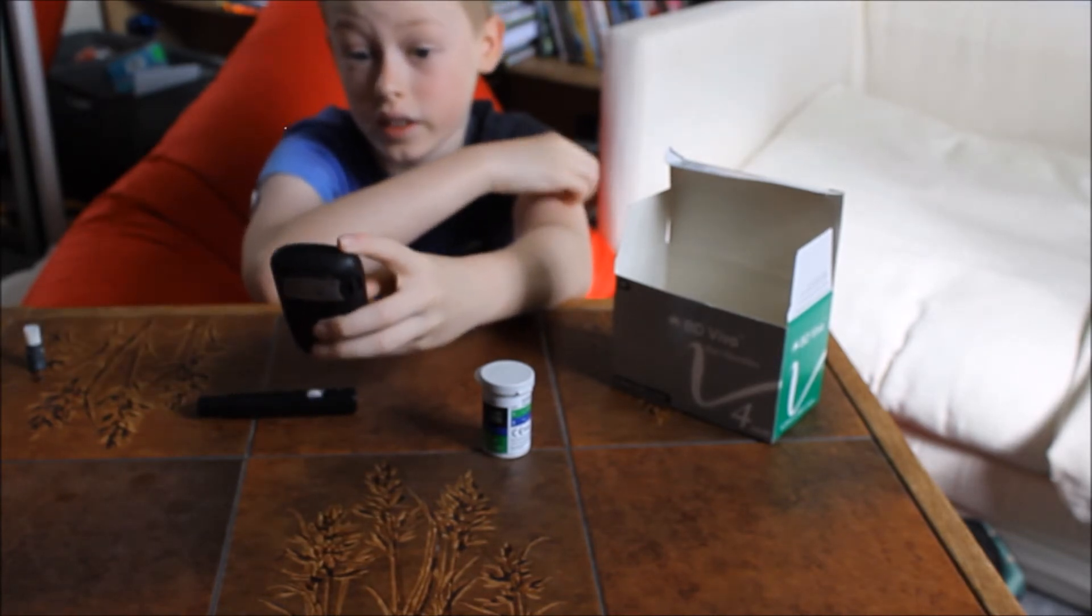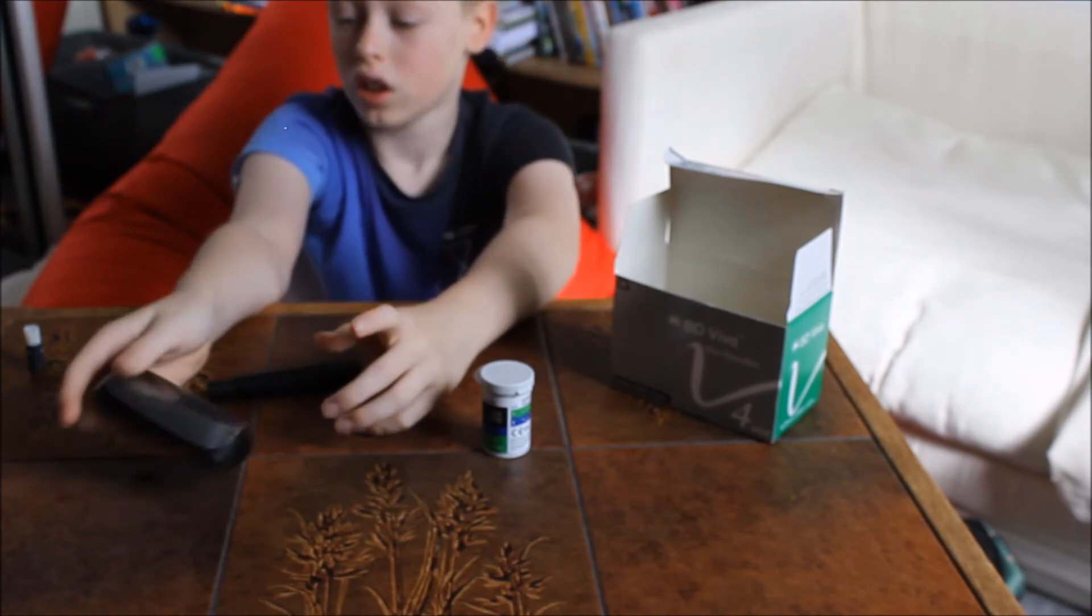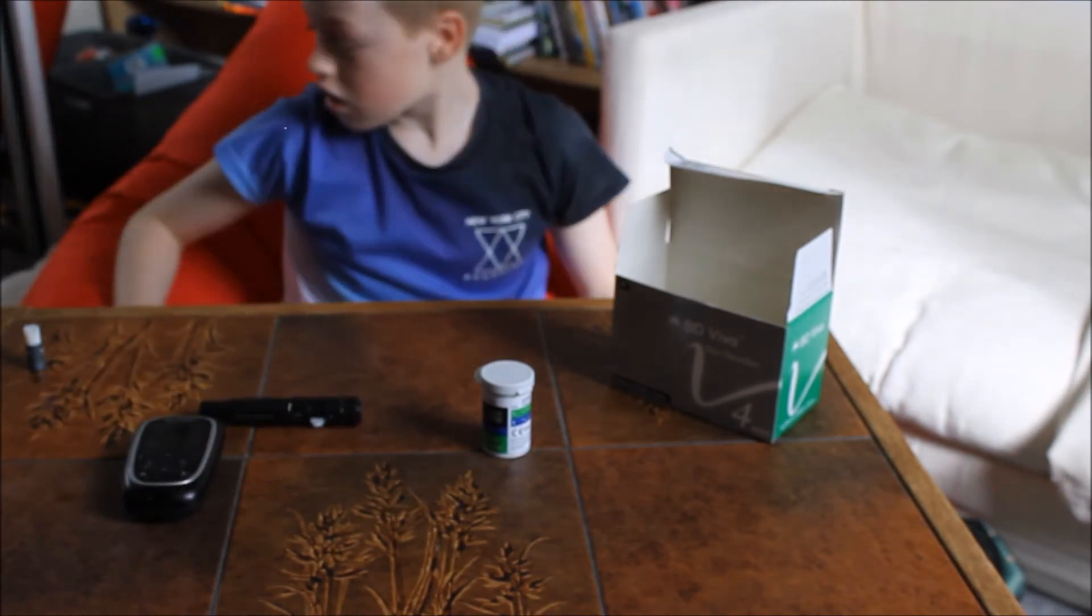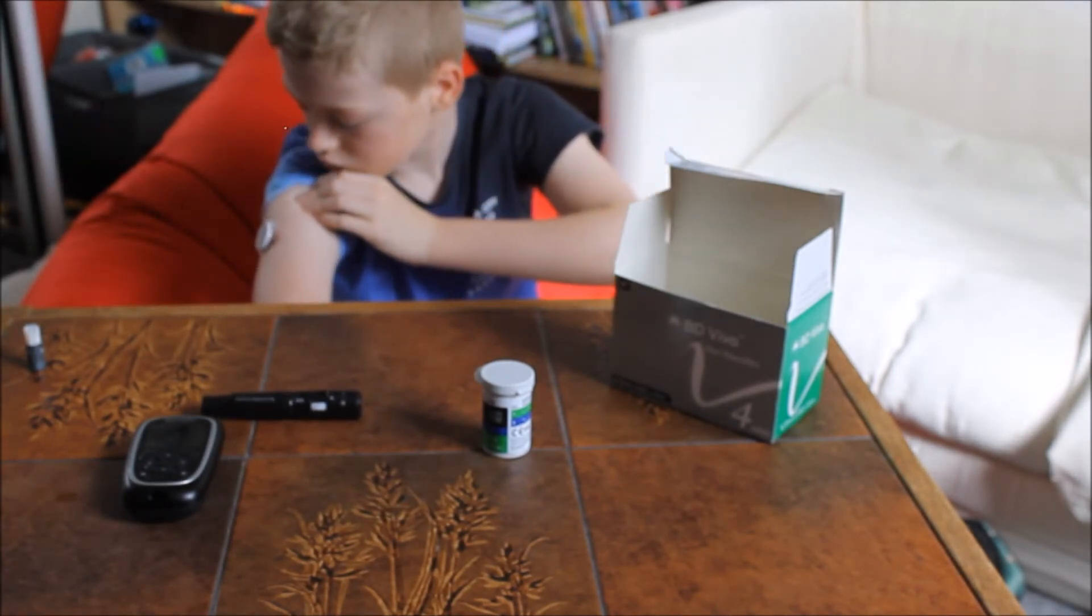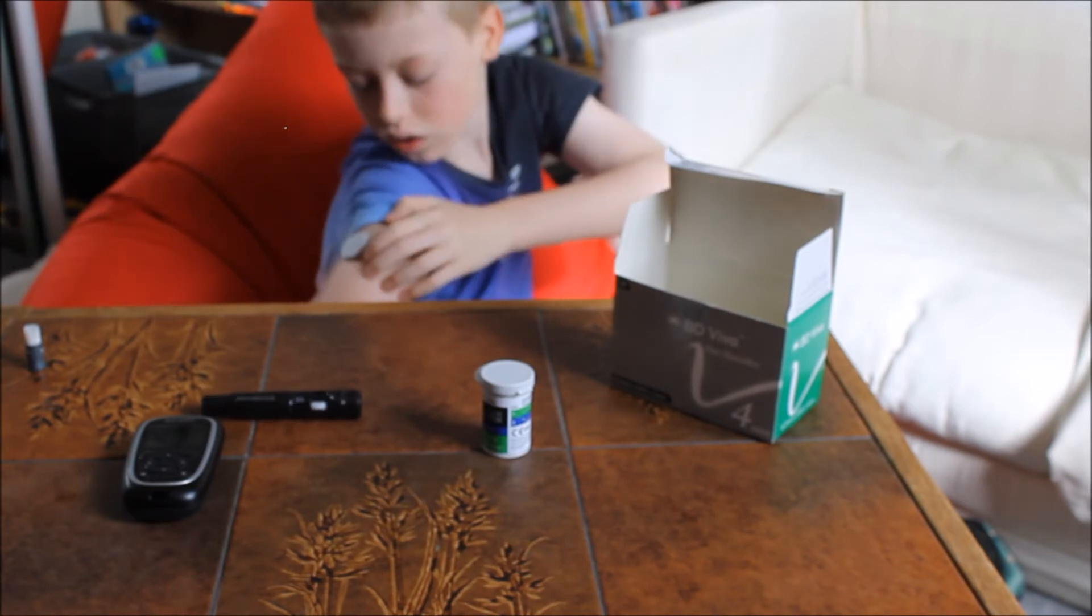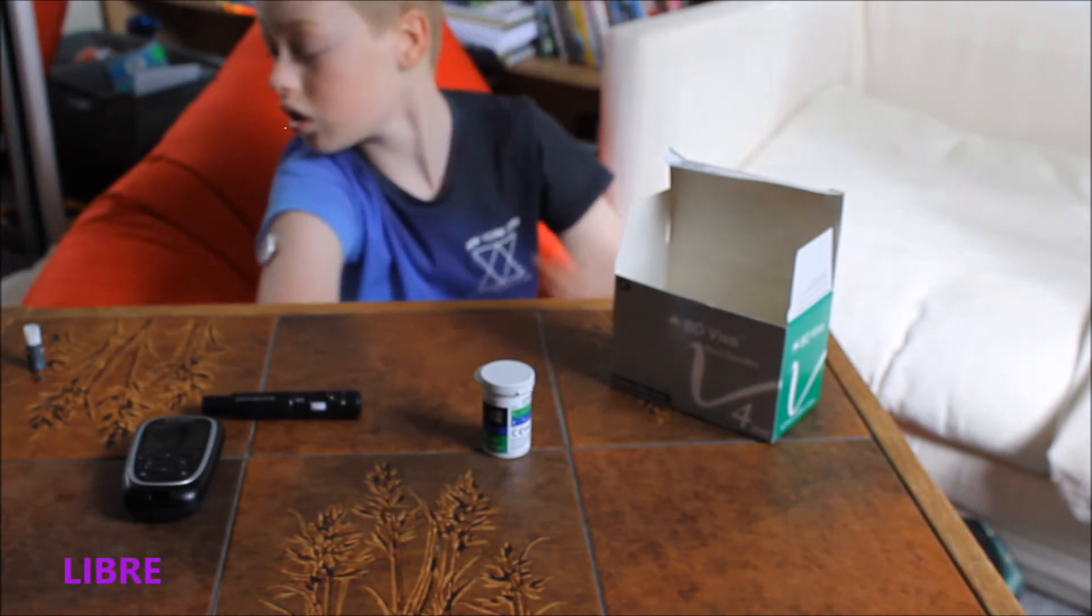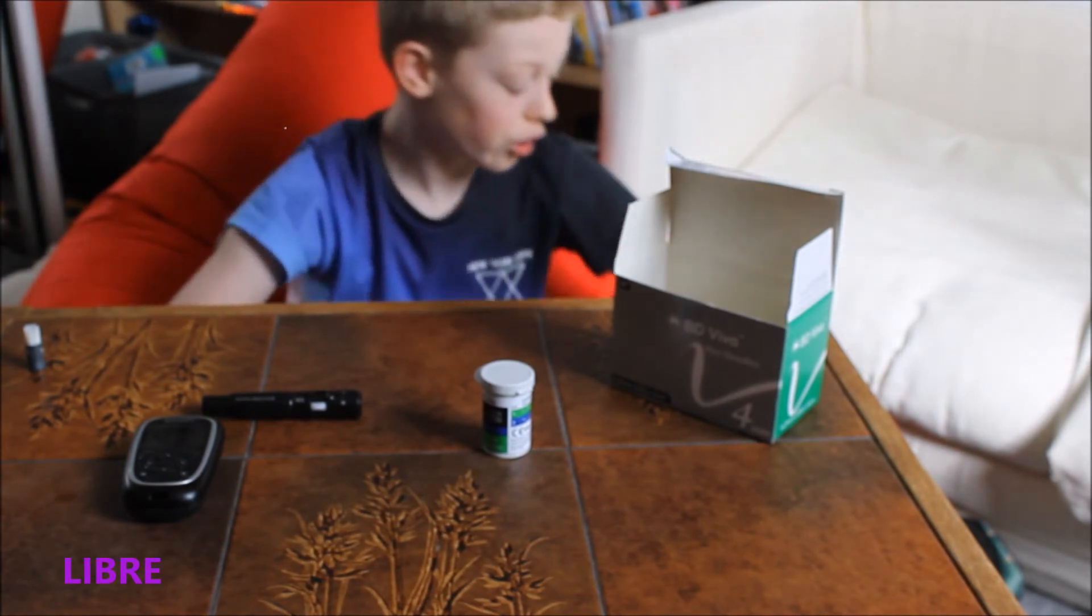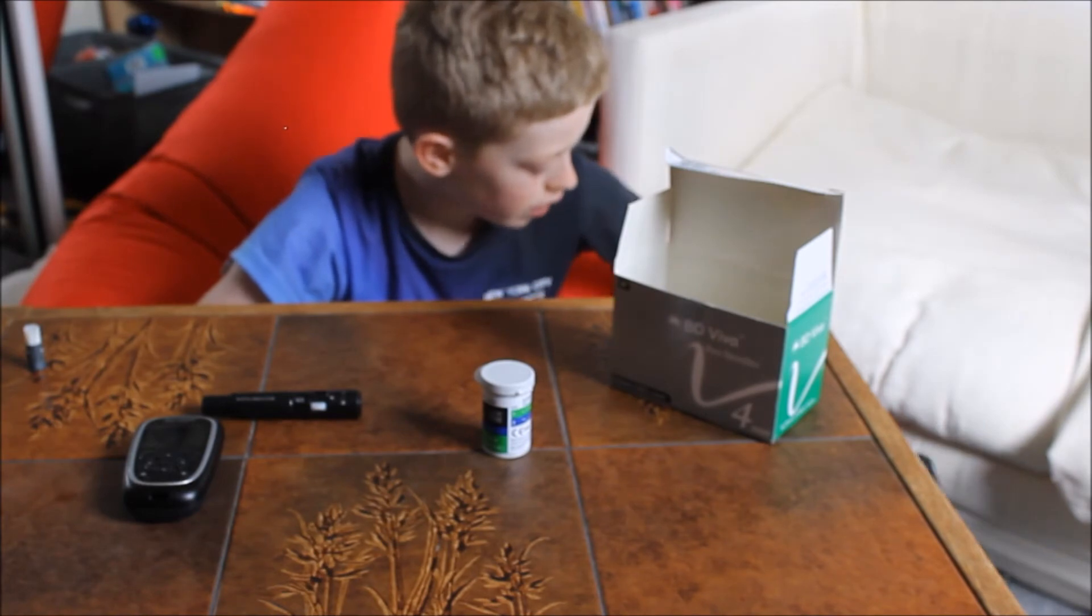Next is the Libre. Some of you might have noticed whilst viewing this that I've got this on. Don't worry about that—that was an accident. Then with a Libre you can use, I don't have it on me right now, but there's a Libre scanner.